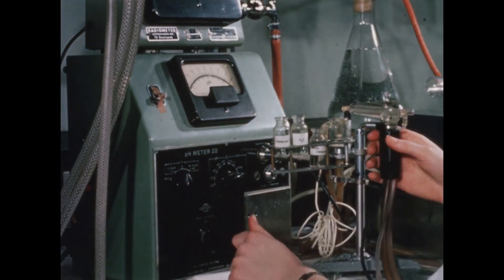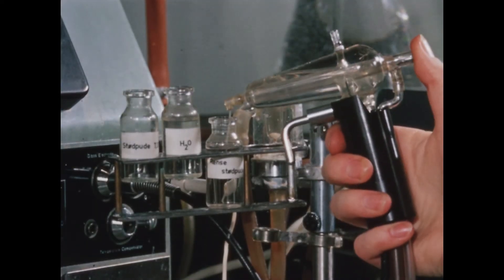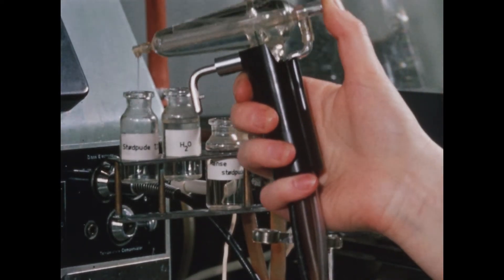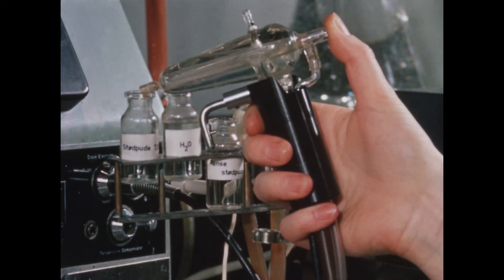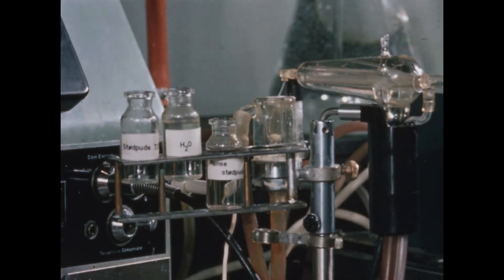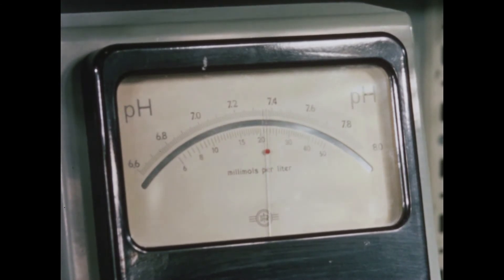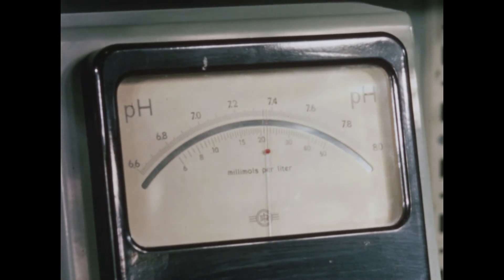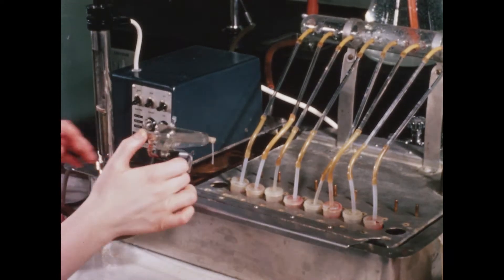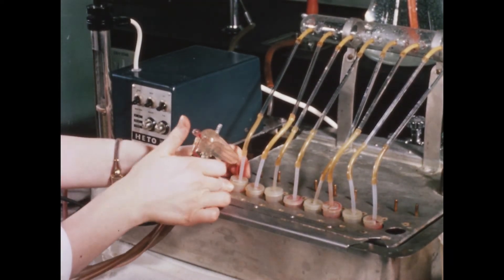The sensitive part of the electrode is the capillary tube, shown now filled with blood. This tube holds 20 to 25 microliters. It is fixed centrally in a glass chamber, which a thermostat keeps at 38 degrees centigrade. The bicarbonate content of the plasma is read directly on the scale in milliequivalents per litre.